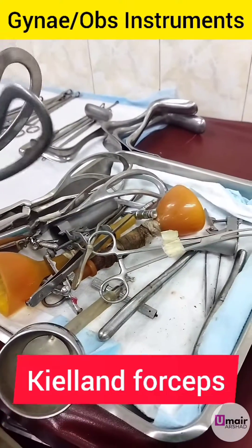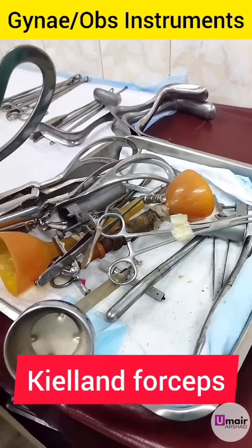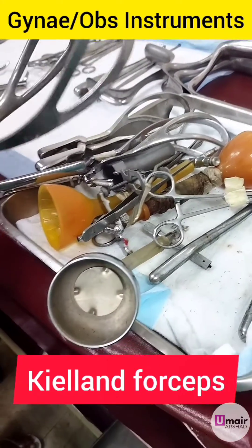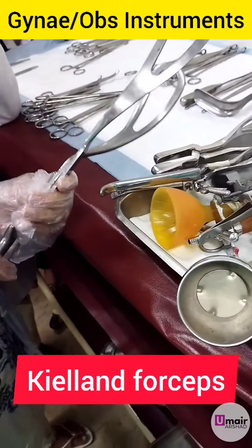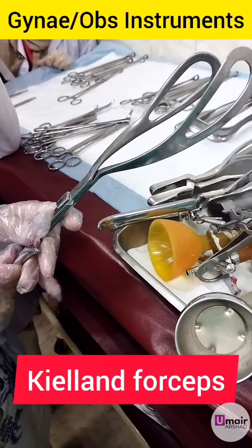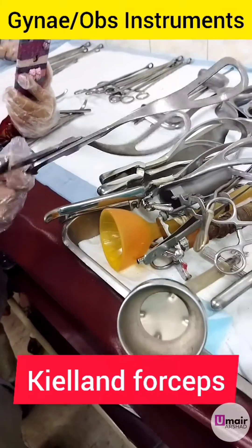This is a sliding lock. This is not a pelvic curve because we do it in different planes. We can do it in different planes — we can do it like this.